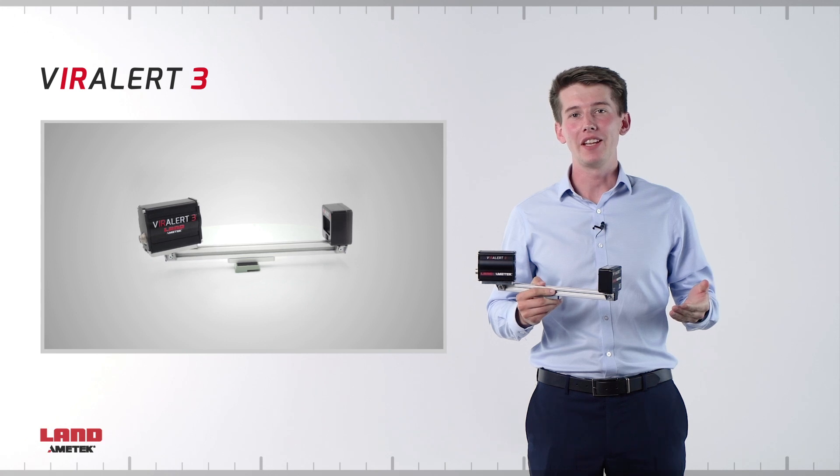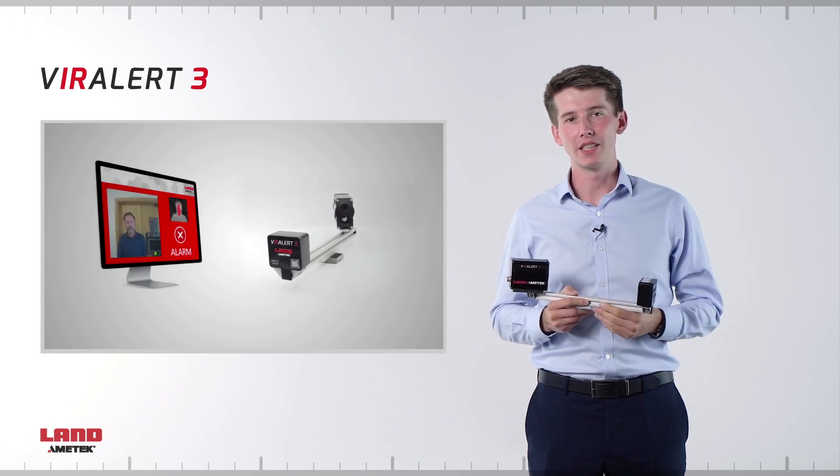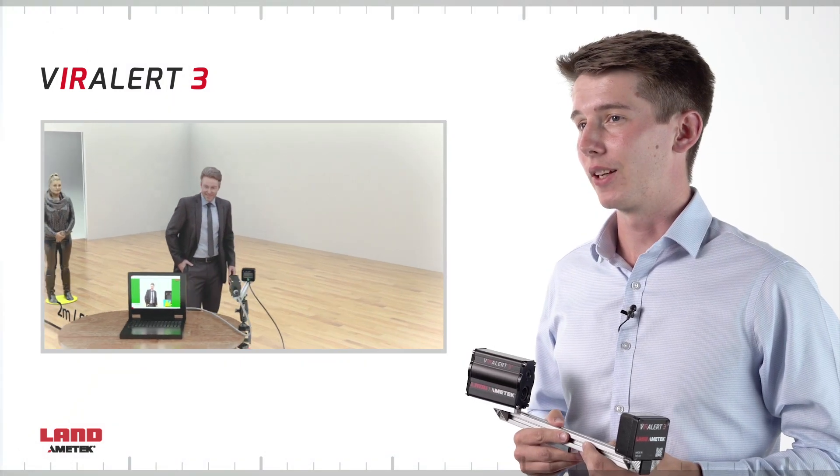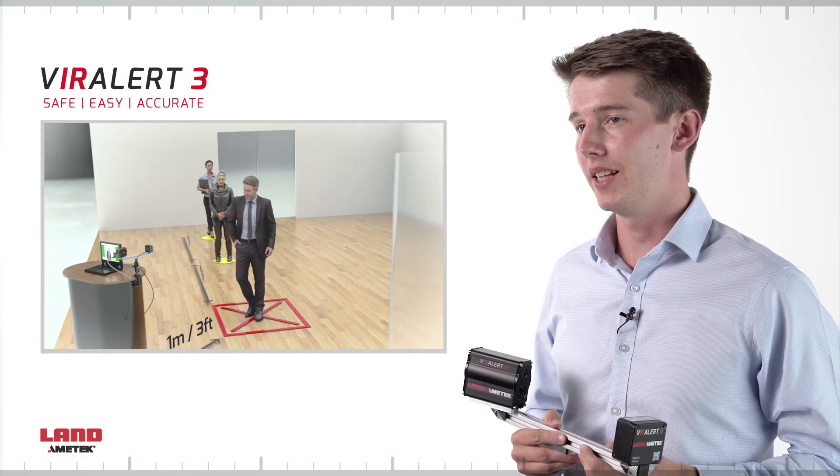The Viralert 3 thermal imaging system provides an effective solution for temperature screening at points of entry into buildings. We have pioneered this technology, making it safe, easy and accurate.